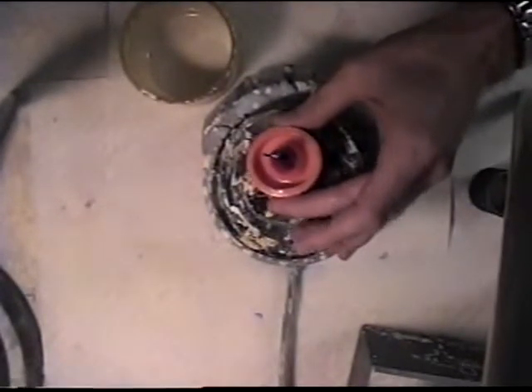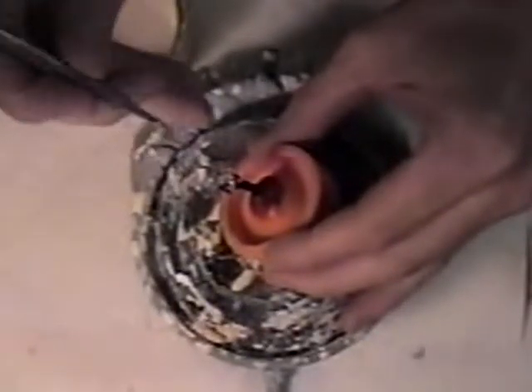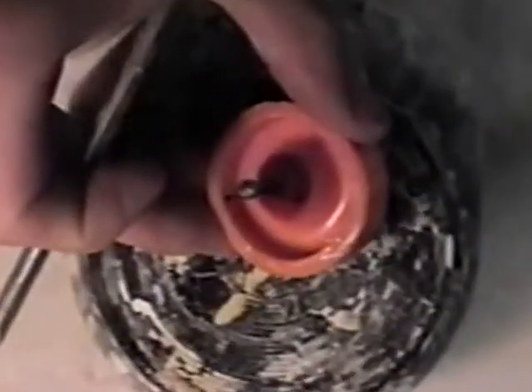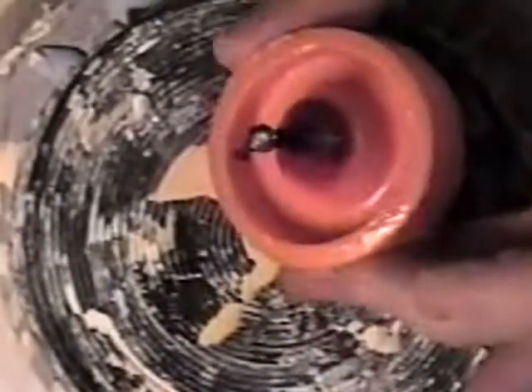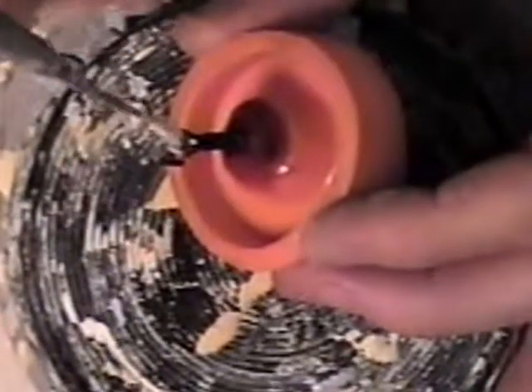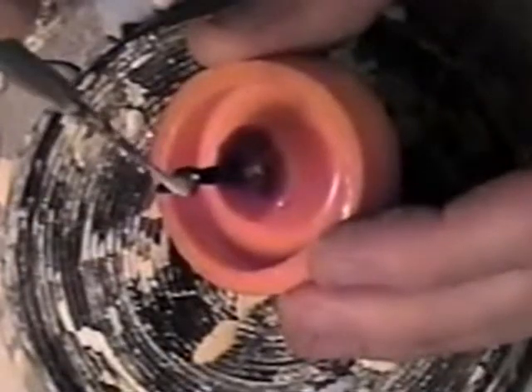Take my wet investment with an instrument. Let the investment flow into the screw hole until it starts coming out underneath. It's coming through now.